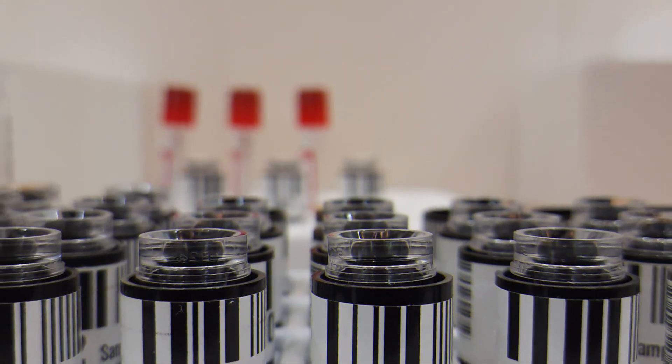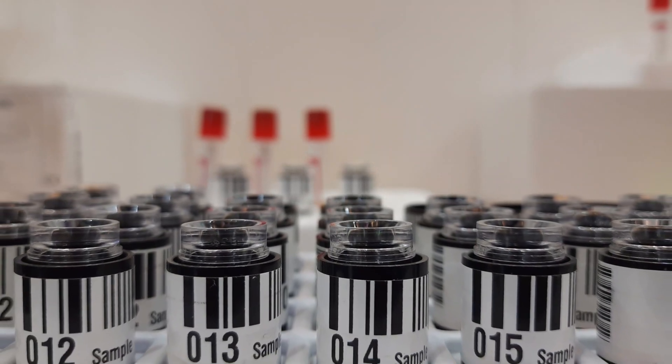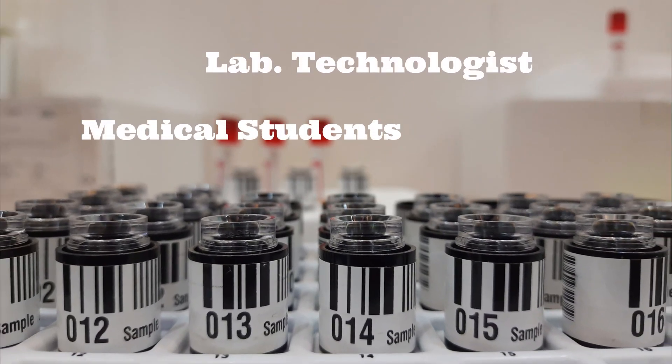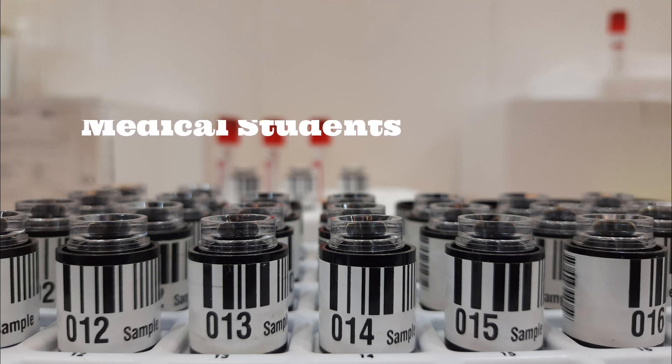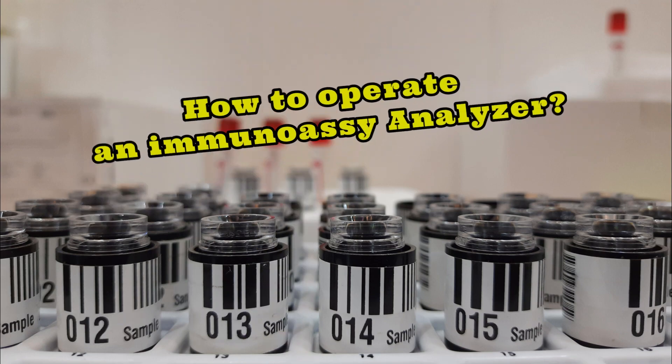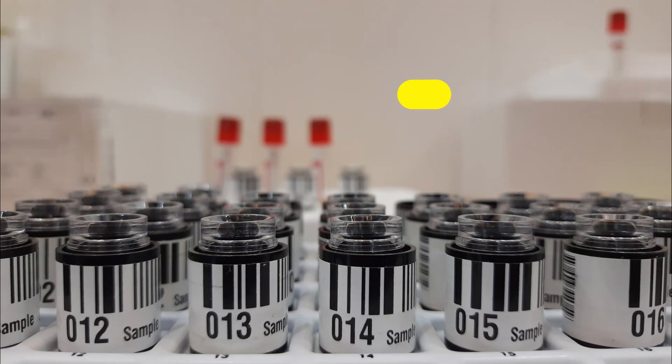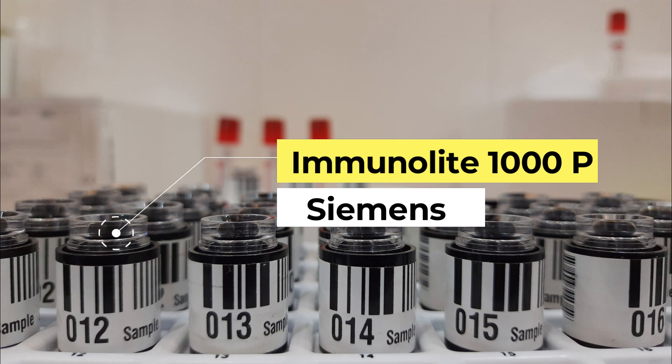Assalamualaikum and welcome to Medsense. Today's topic will be primarily for laboratory technologists and undergraduate medical students. Today we will see practically how an immunoassay analyzer is operated. We will use patient's serum here for analysis of a cardiac marker troponin I, from serum preparation to result generation. Let's go then.